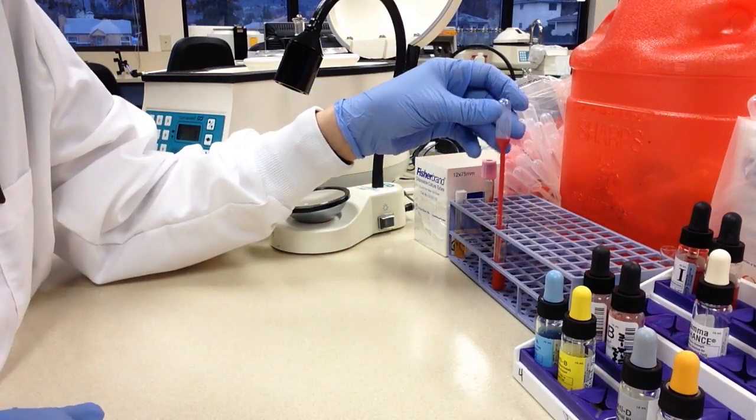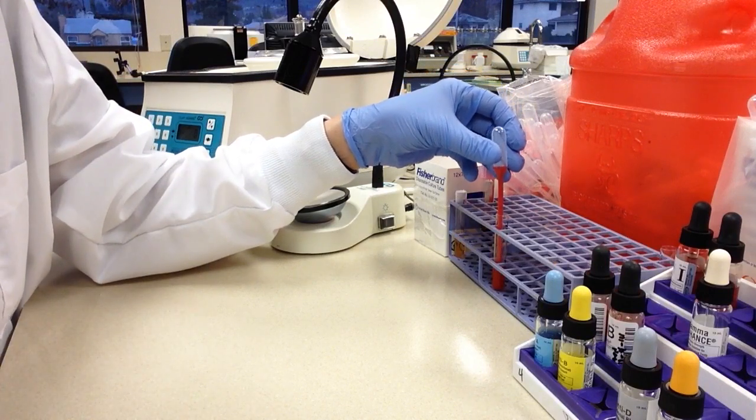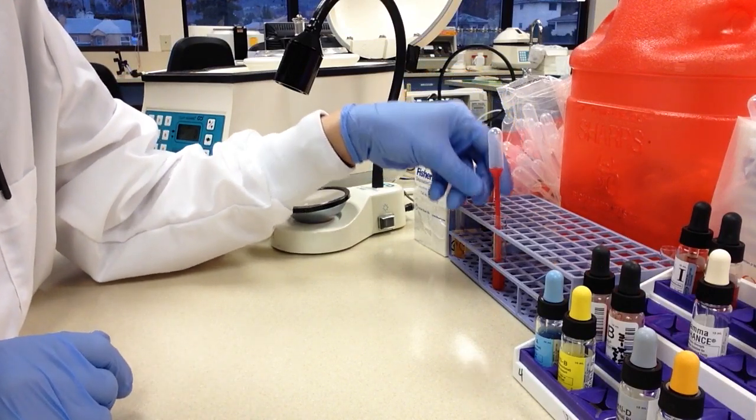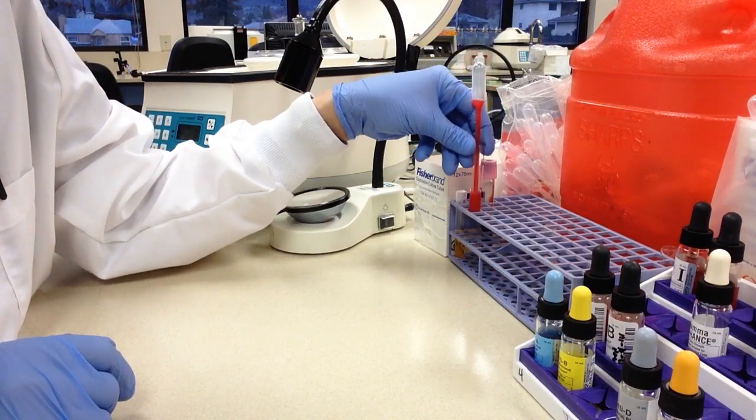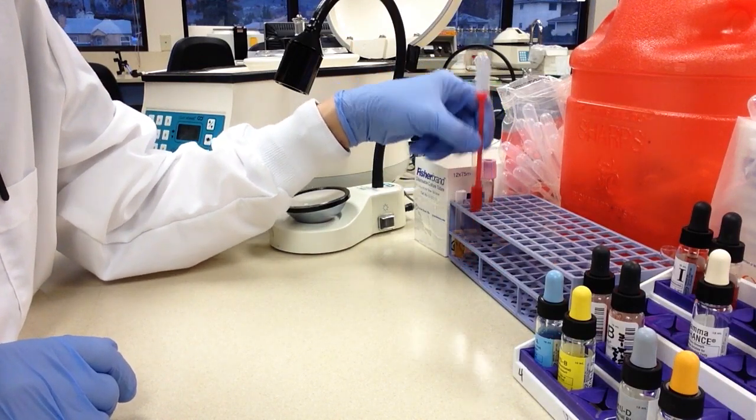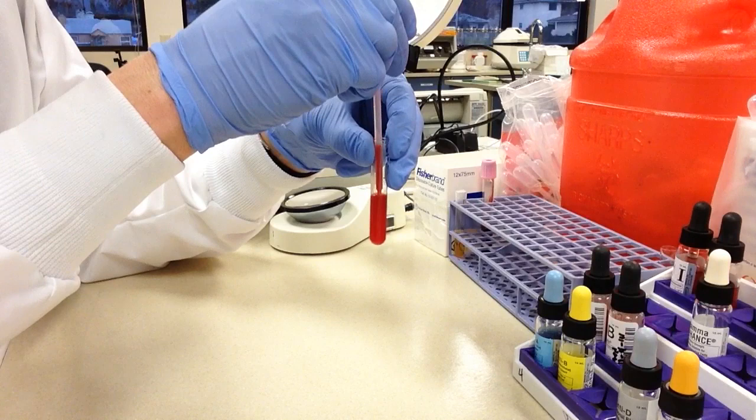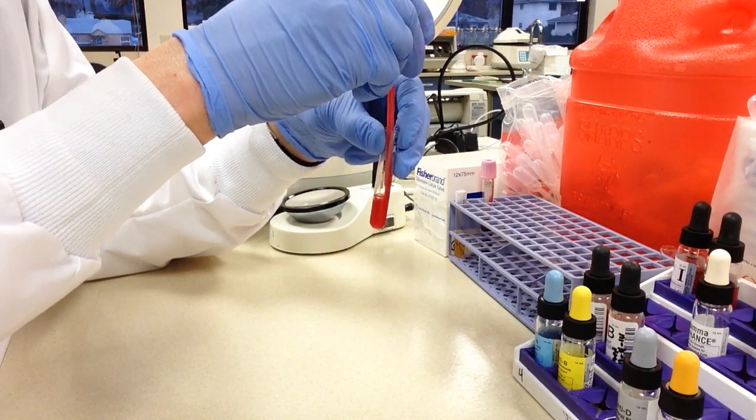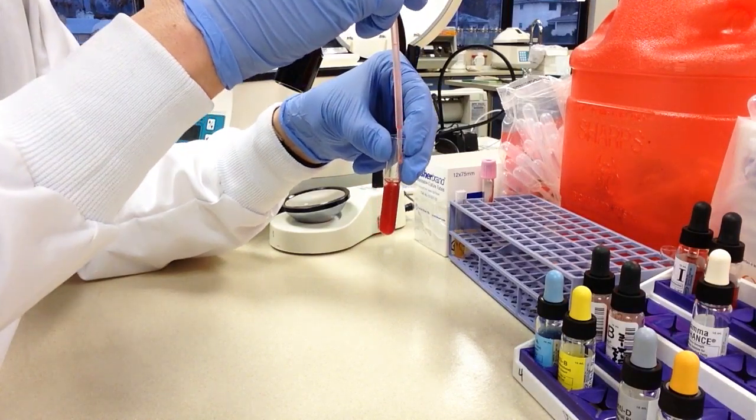Now, keep in mind that whenever you let cells in a tube sit, the cells are going to settle. So before any time you use it, make sure you give it a once or twice up and down just to get that good and mixed up. And then you can go ahead and use it.